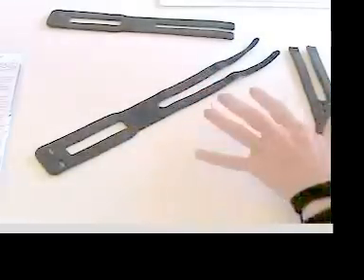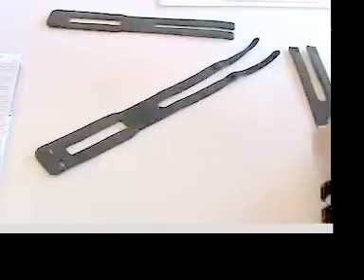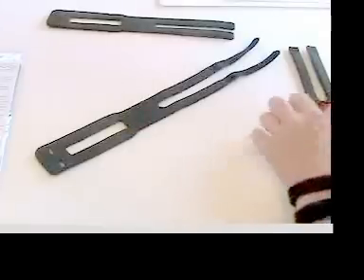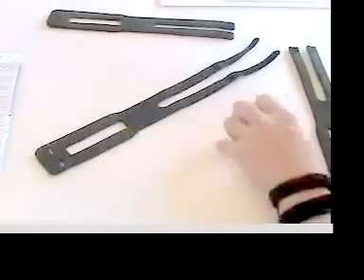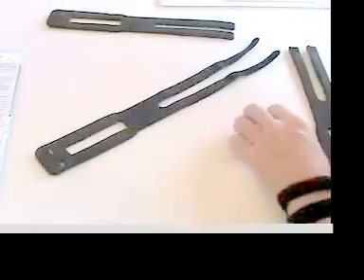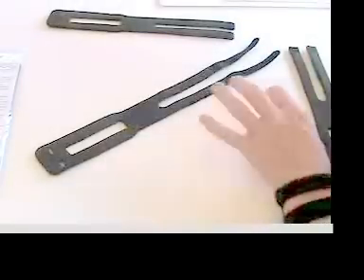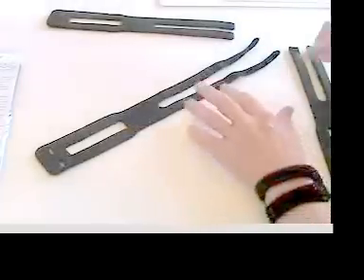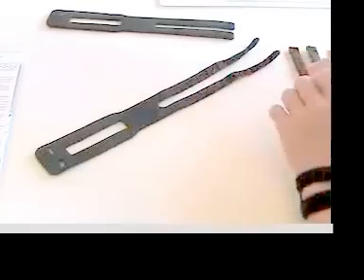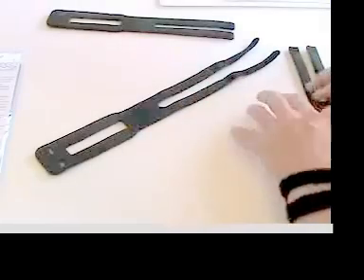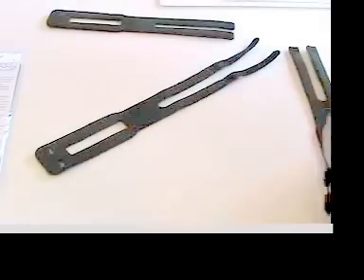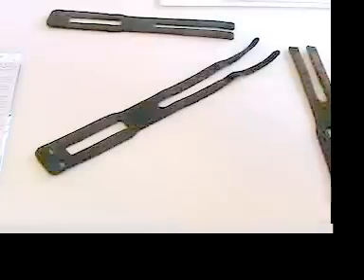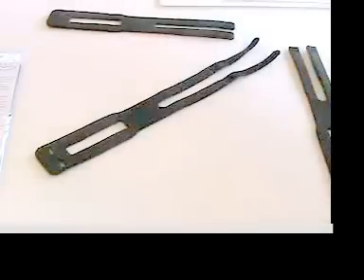This splint has evolved nicely to a simple and elegant small design and it is designed for immediate relief of ulnar side of wrist pain with the wrist widget on.